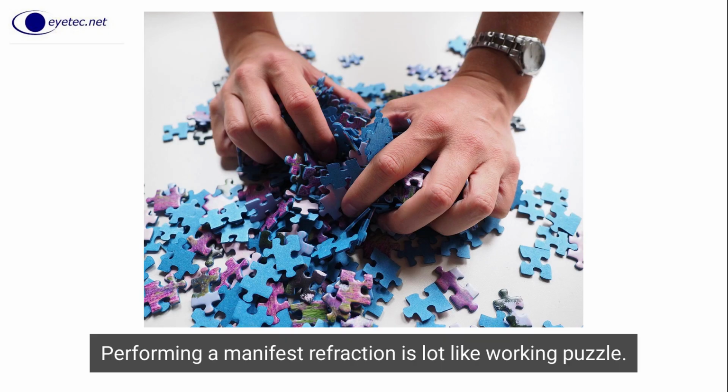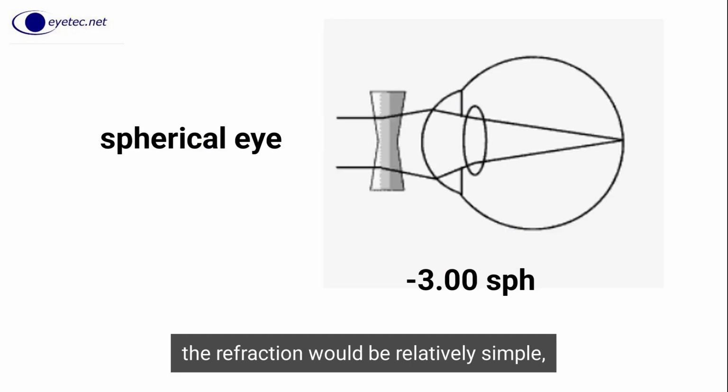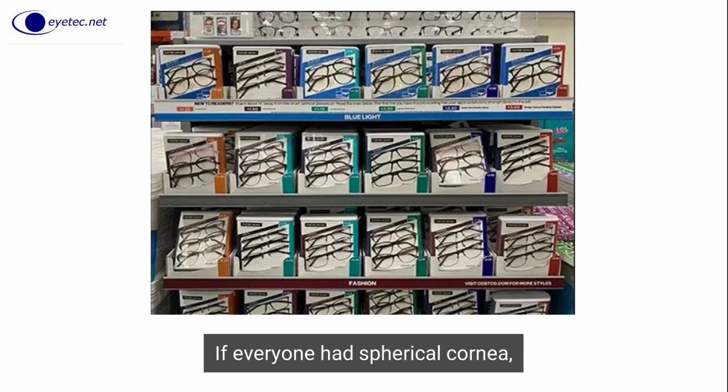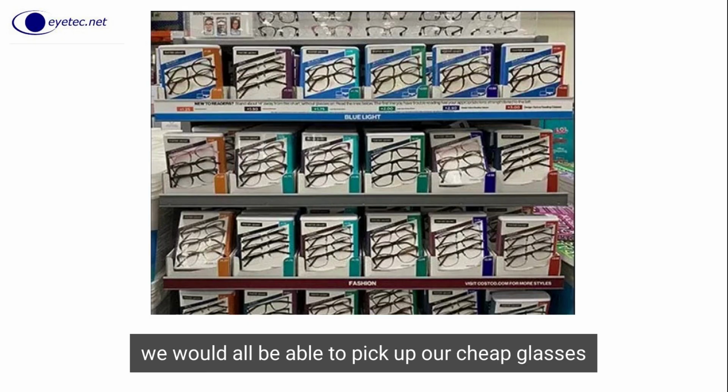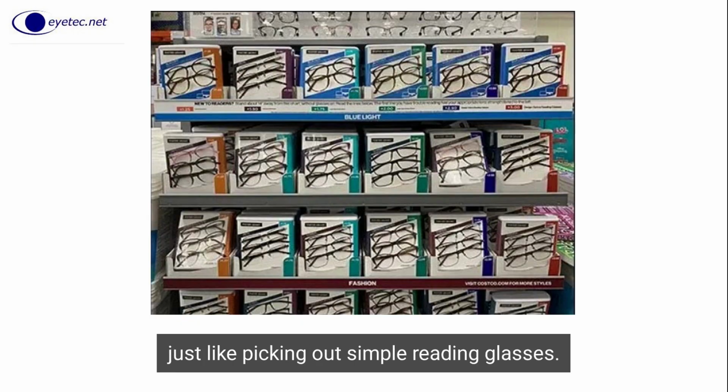Performing a manifest refraction is a lot like working a puzzle. If the optics of your eye is perfectly spherical, the refraction would be relatively simple, requiring only a spherical lens to correct any refractive error. If everyone had a spherical cornea, we would all be able to pick up our cheap glasses prescriptions from a sales rack at Walmart, just like picking out simple reading glasses.